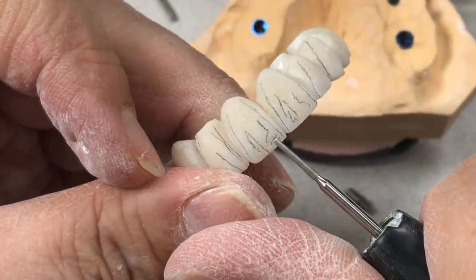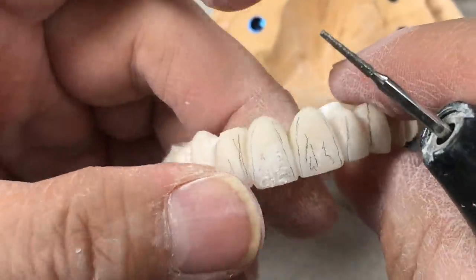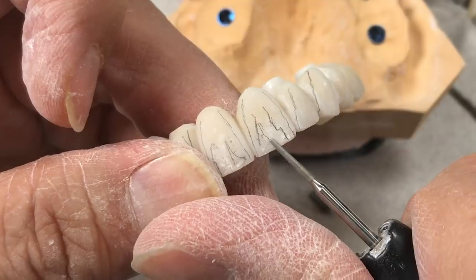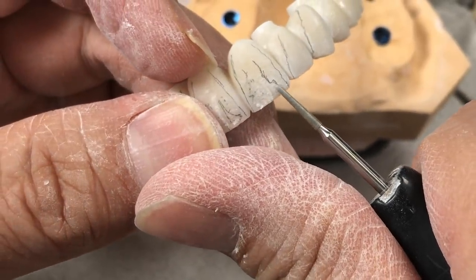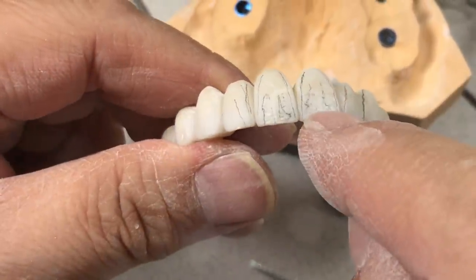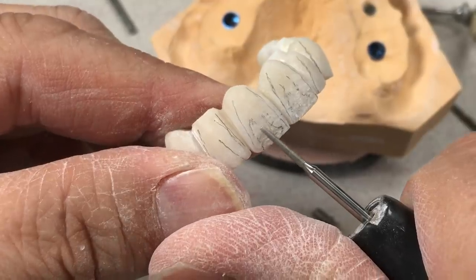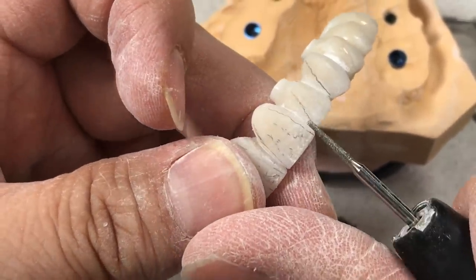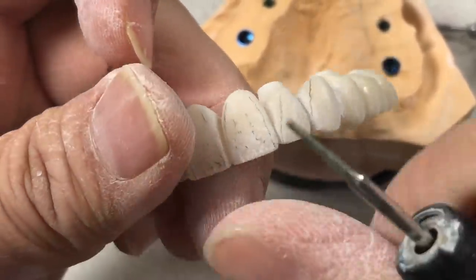At just very slow speed, let me show you how to make surface texture — horizontally and vertically. It's not the same, but it's wide, just like my fingerprint. So this is the fingerprint surface texture — you see the texture. Make sure it's a thin diamond bur to remove material. I don't have to make as much as this, but we need a good fingerprint pattern here.